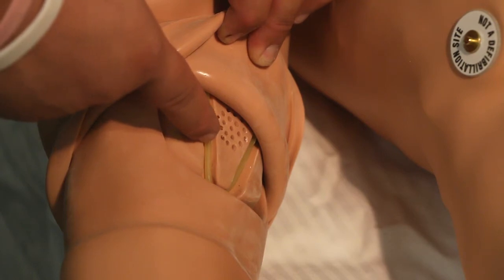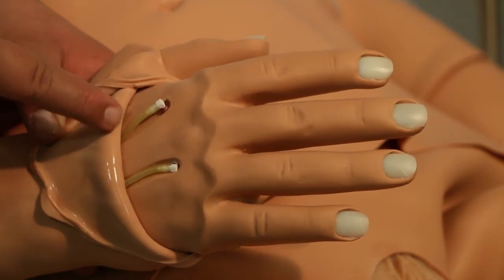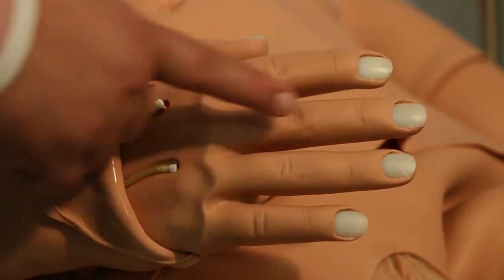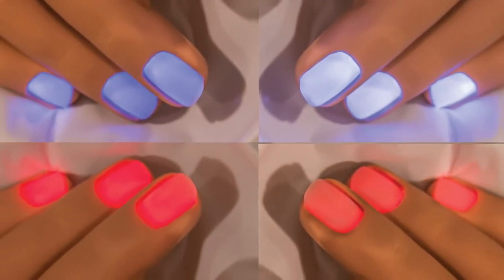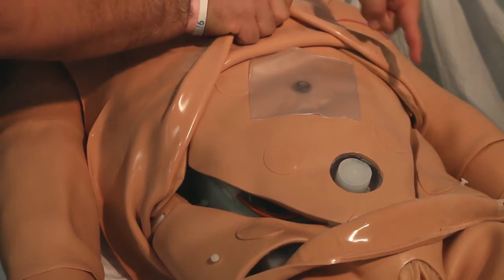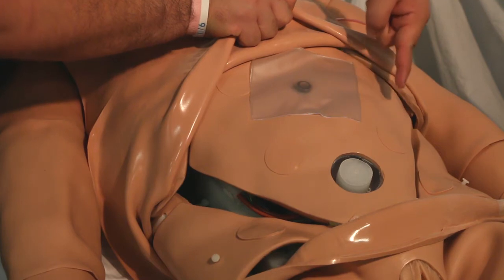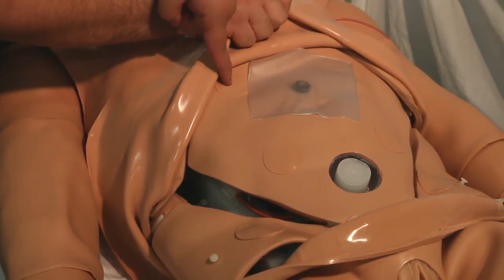In the antecubital there is the blood pressure speaker and the IV access site. Dorsal on the hand are additional IV sites and reactive fingers. Fingers can reflect cyanosis or carbon monoxide. Pulse ox is included on the right index finger. The abdomen plate has left and right femoral pulse points and bowel sound speakers for the four quadrants of the abdomen.